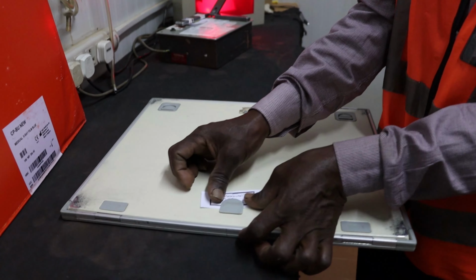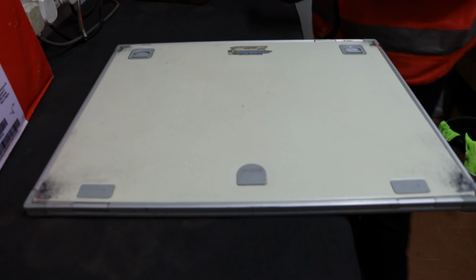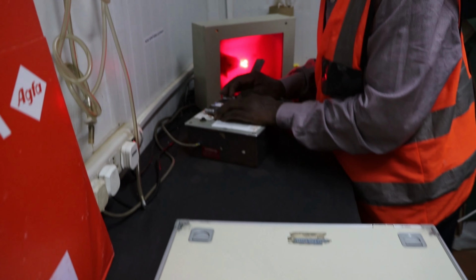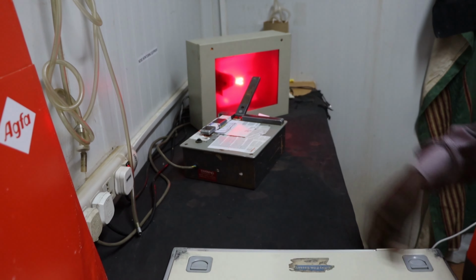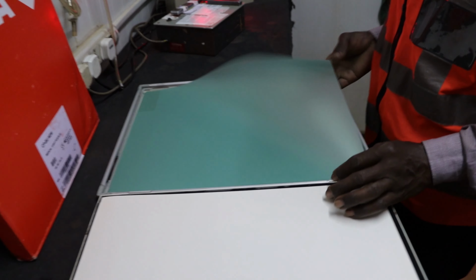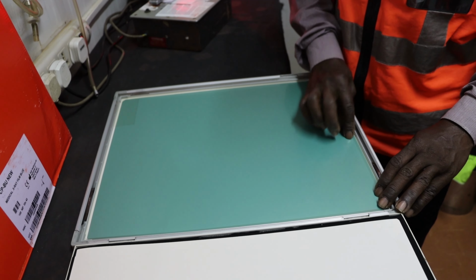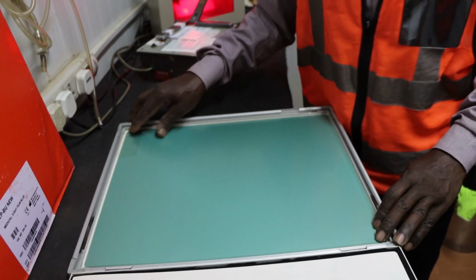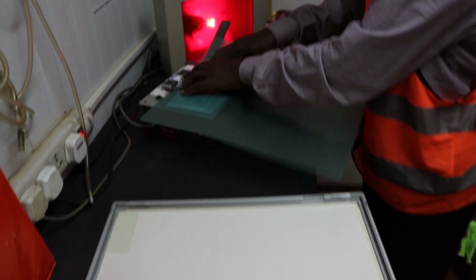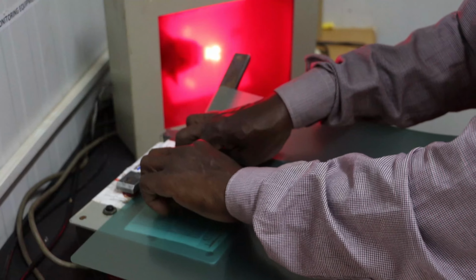The cassette will come with a slip just like this. Then when it comes here, under dark condition, I will set it here. Center it nicely, check. Then I open the cassette. We've been instructed to print from here, one or two parts. So step one, I'll print from here. I'll hold here and print: 1, 2, 3.